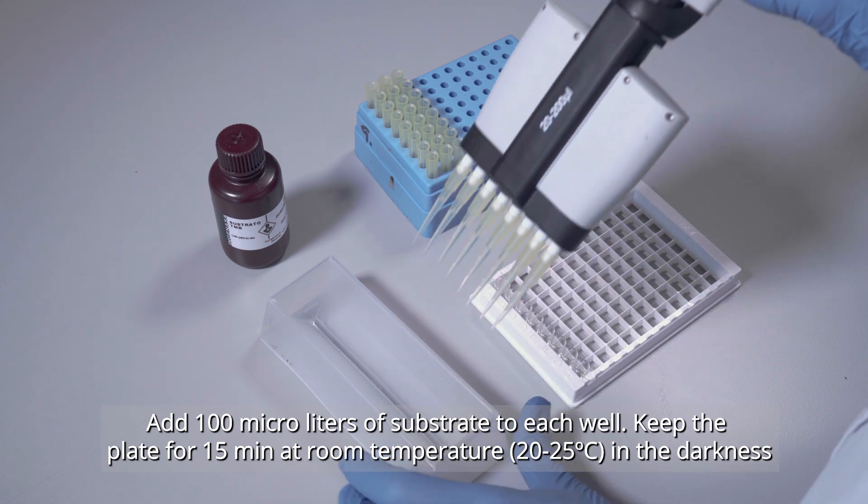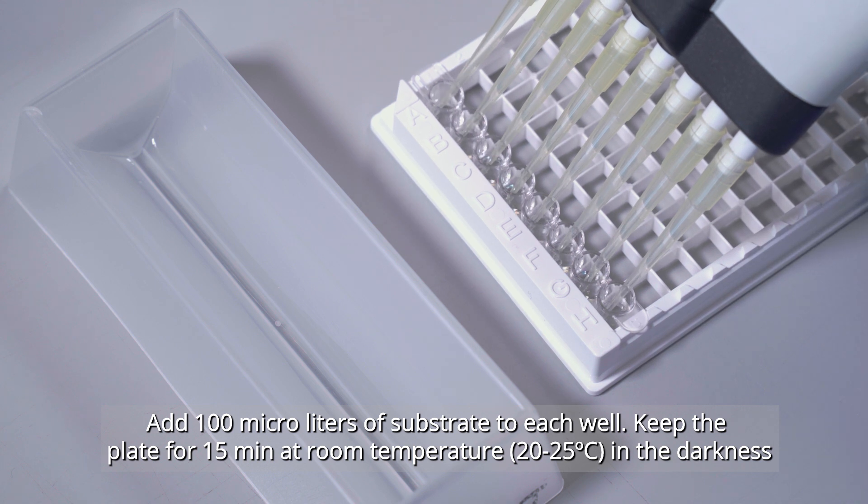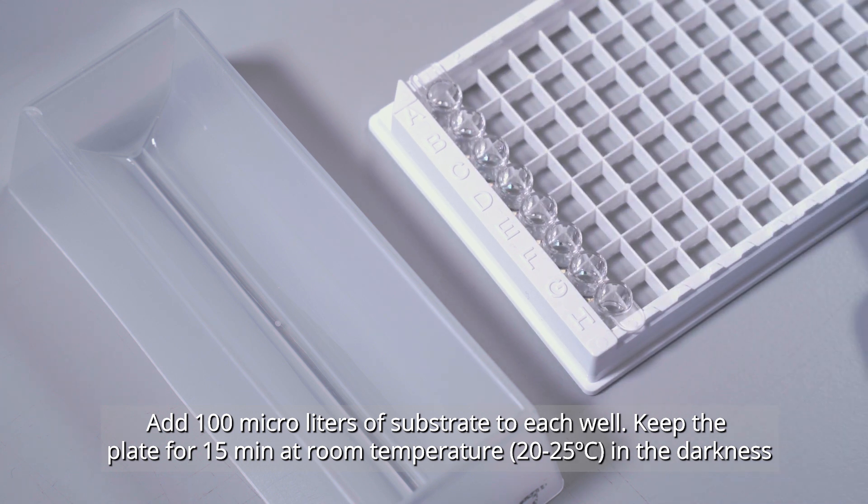Add 100 microliters of substrate to each well. Keep the plate for 15 minutes at room temperature, 20 to 25 degrees C.